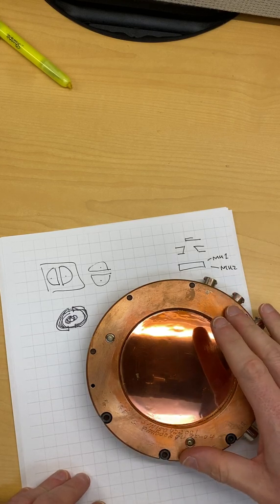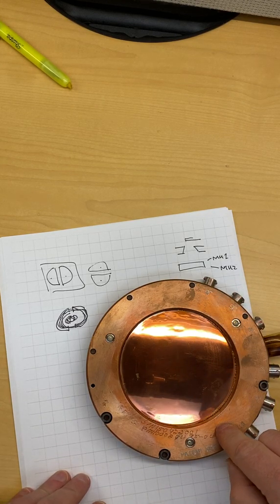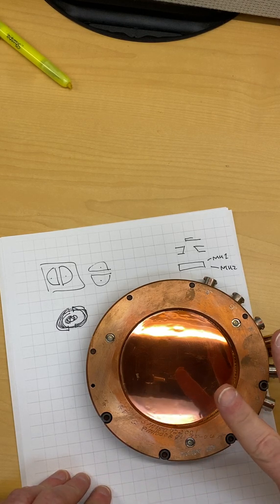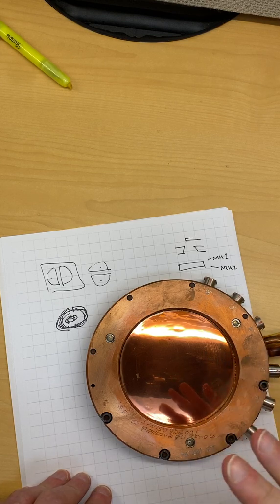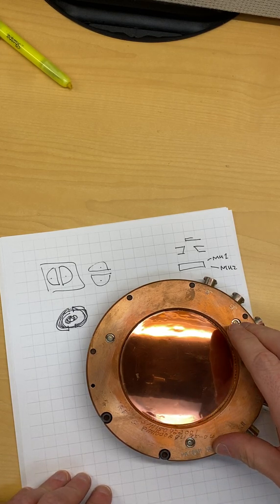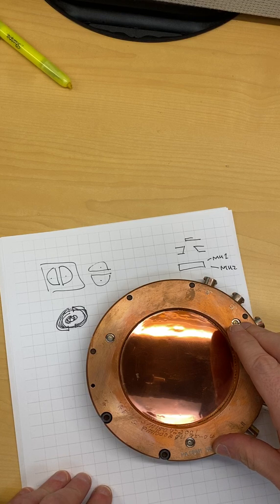This machine can run - the gas molecules inside this monitor chamber are the exact same ones that were there when the machine shipped. So if you have a machine that's like 15 years old, the gas that was inside that when it was shipped is the exact same gas that's in there now.